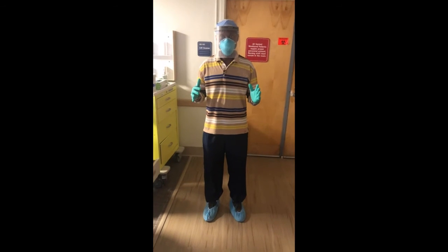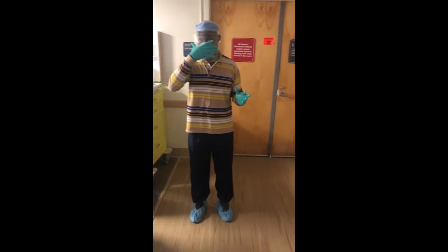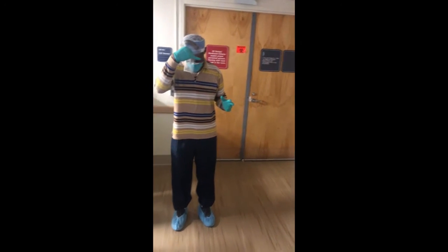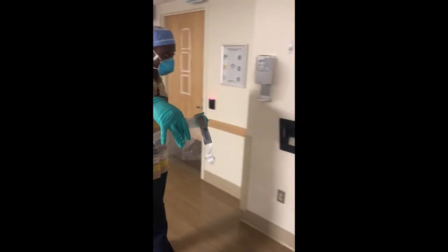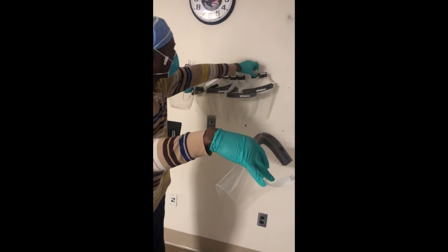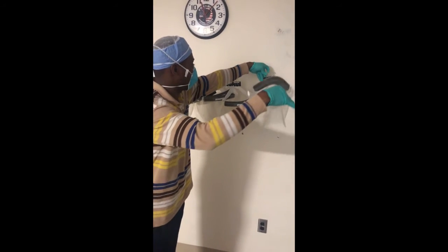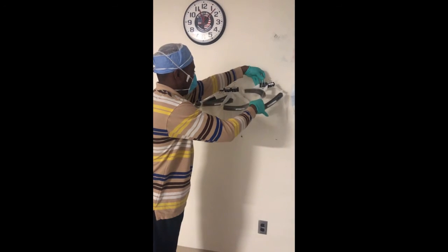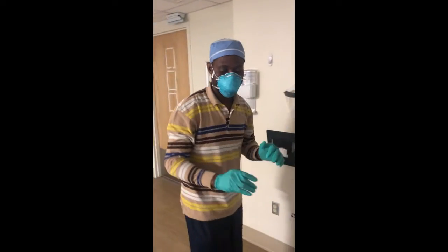Now we're going to go ahead and take off the face shield. Step over to where you need to be. Take it off by pinching the front, pulling it over the top, and hang it up with your respective name. Then decontaminate your hands.